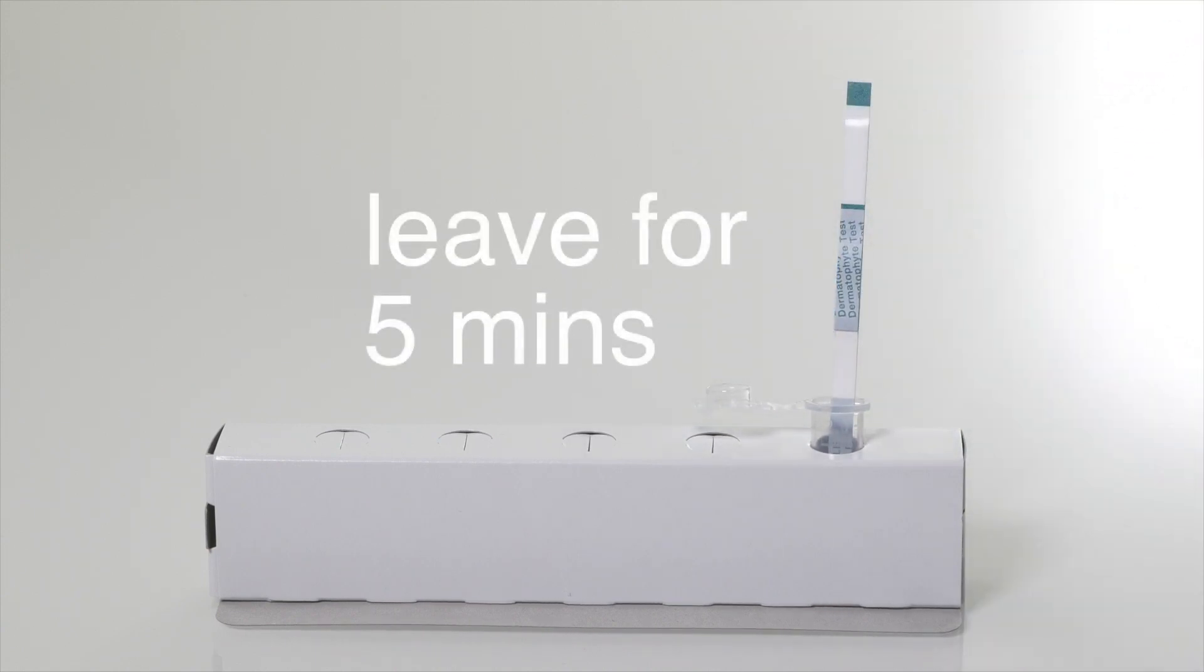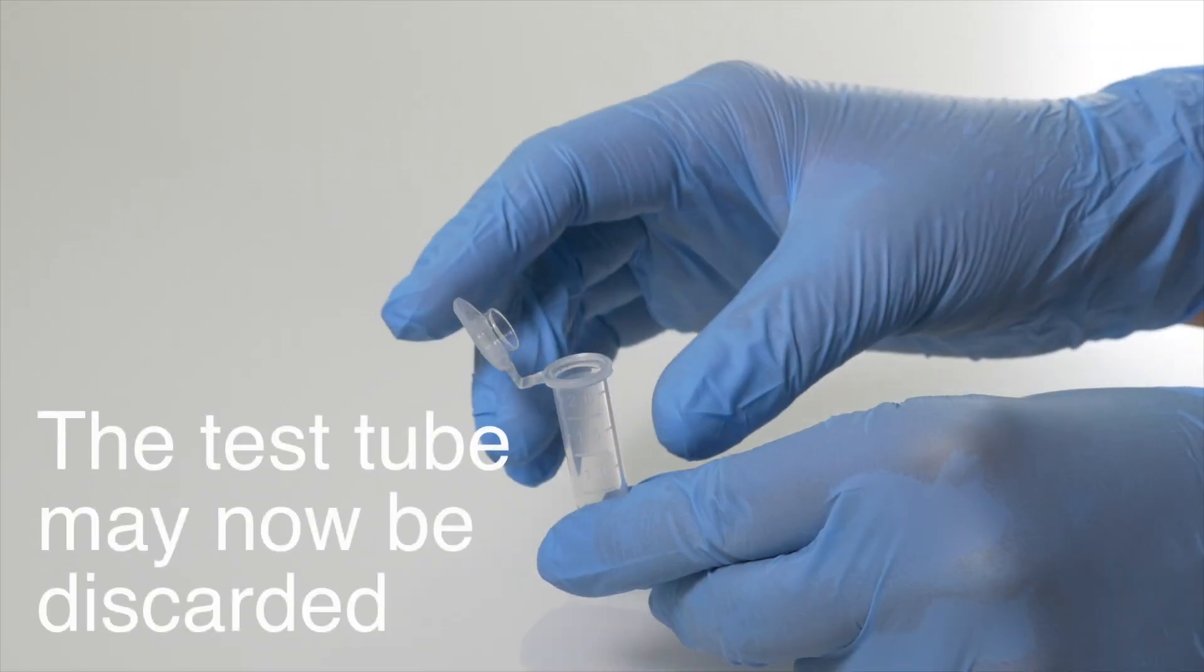After 5 minutes have elapsed, the test strip may be removed from the test tube, and the test tube may now be discarded.